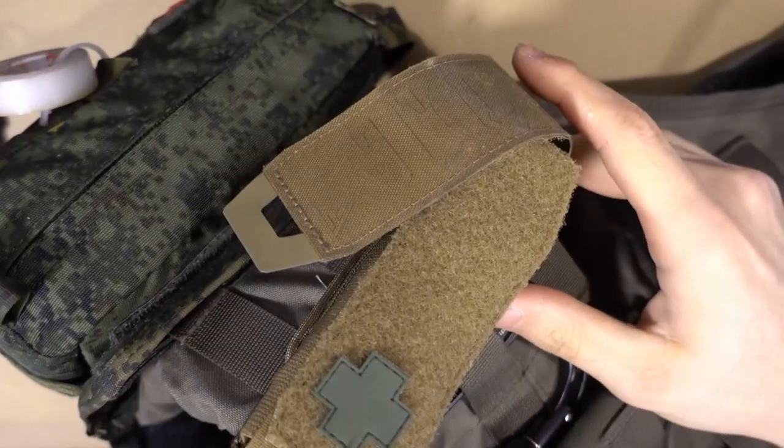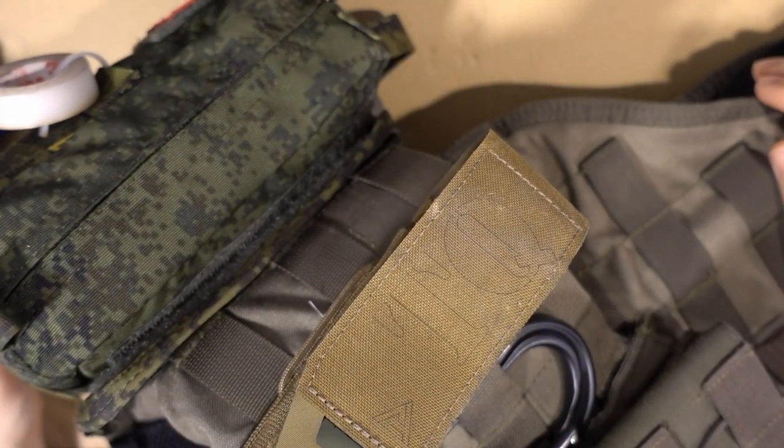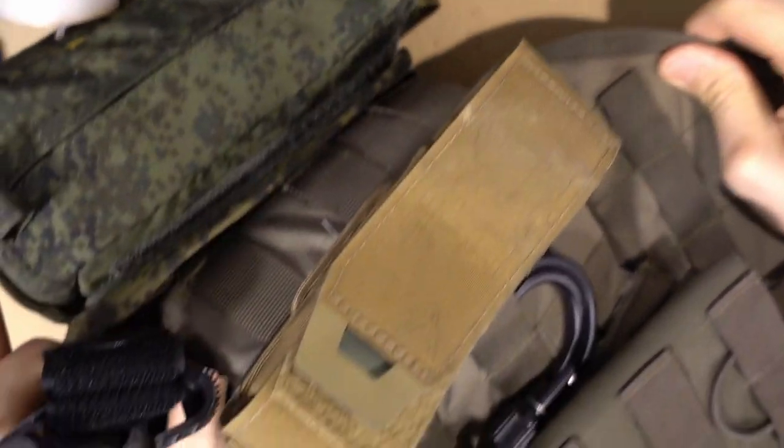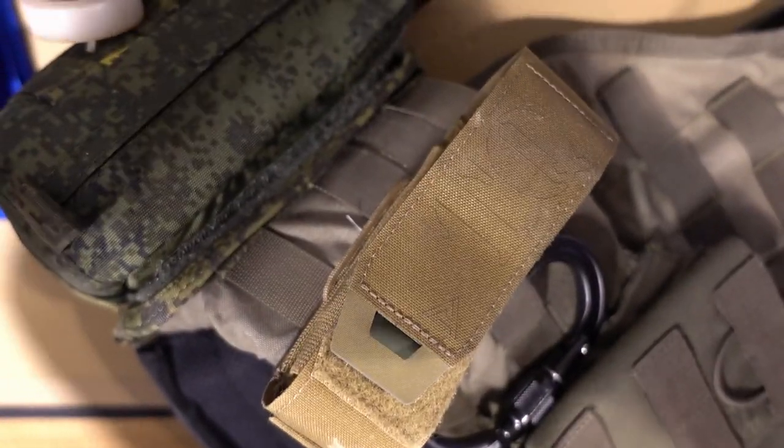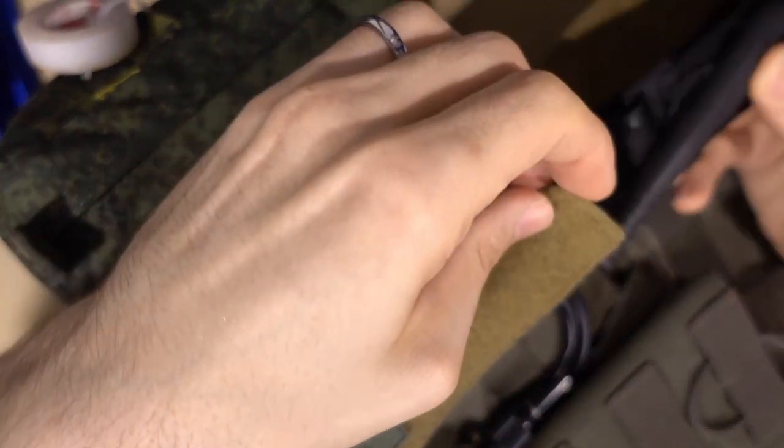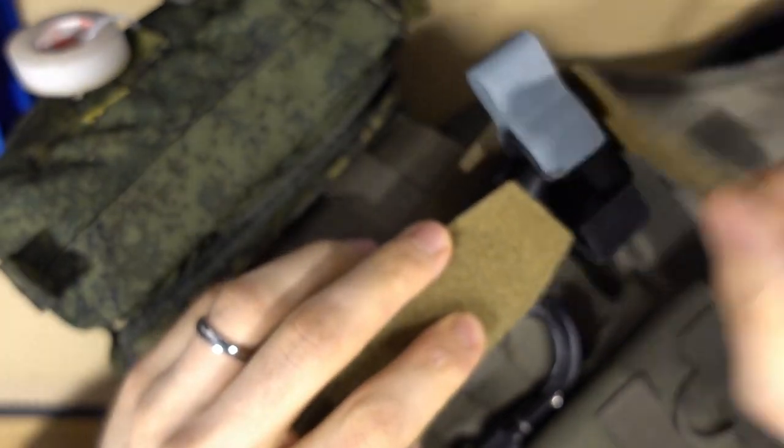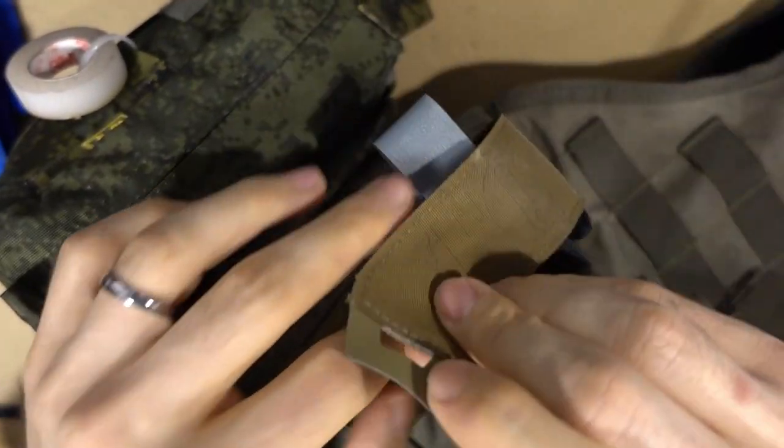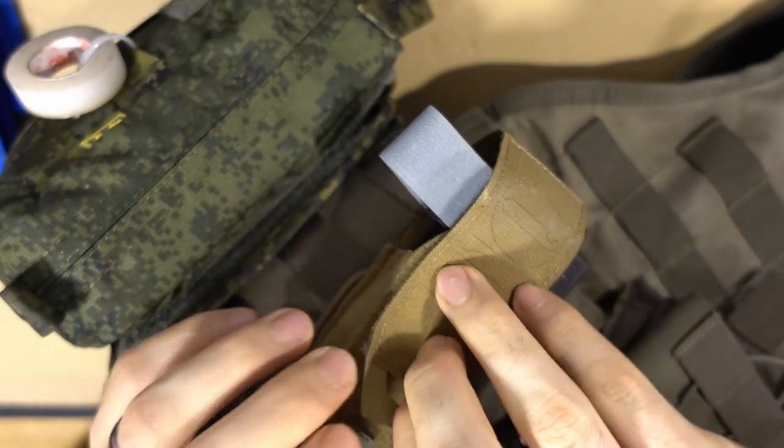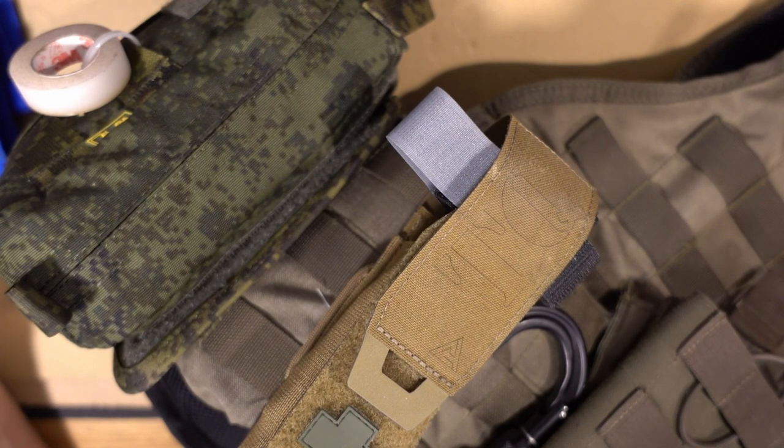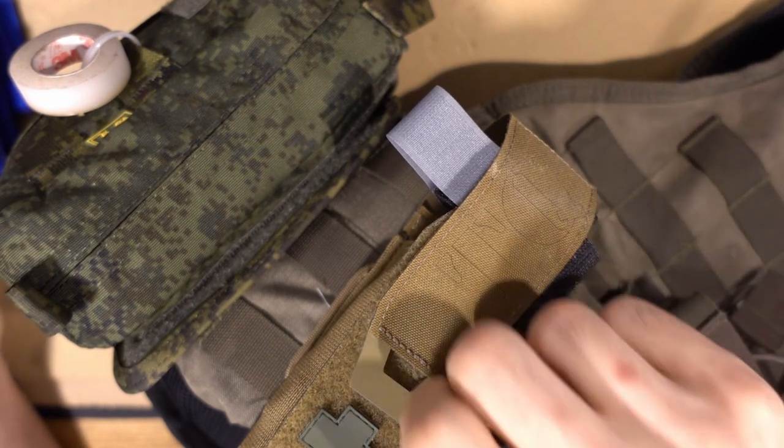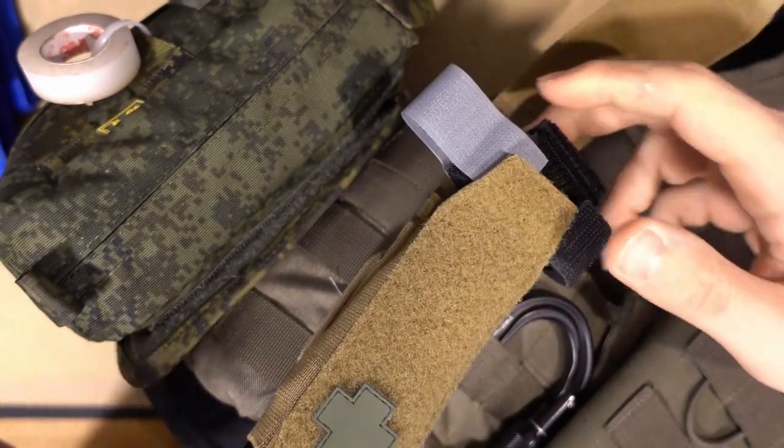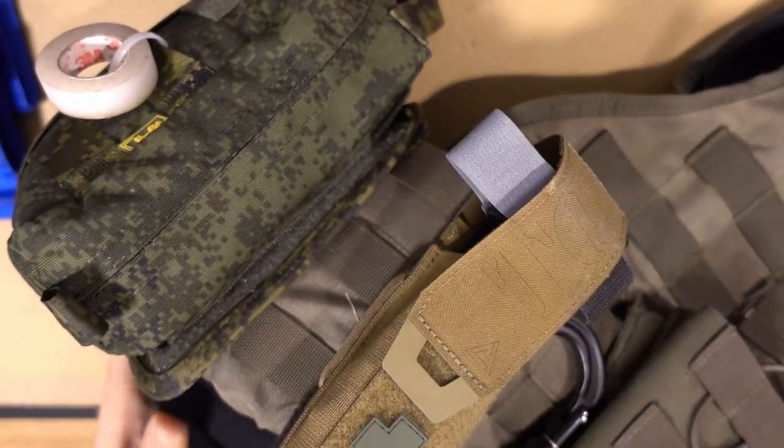So what I changed to when I'm going to my plate carrier is this little pouch from Tasmanian Tiger. It just offers some more protection while still having the full speed necessary. There's this little tab, open it, and you'll be able to deploy the tourniquet really fast like so. There's many ways to do that. As always, test what works best for you, train with it. Get some confidence, get some muscle memory. That's the most important thing. I really like this kind of pouch and you can apply it to any MOLLE system.